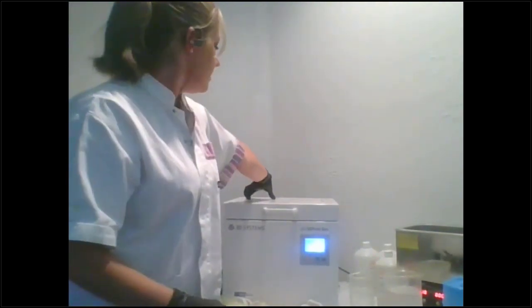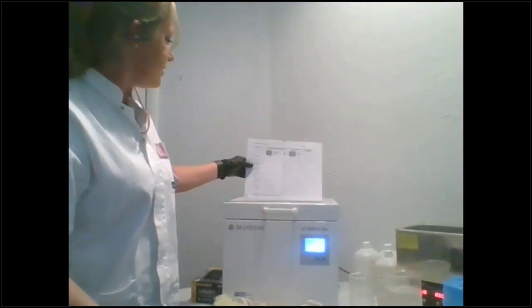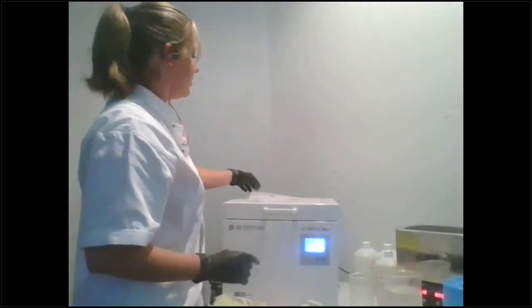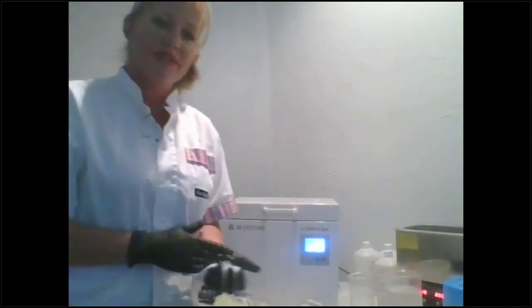We have a chart. And even if you're just using NextDent, but you're not using a NextDent 5100, still use this chart. It's real important. We validated everything with it. And so it'll tell you how to stir, mix, and how long to cure. It's right online. I just printed mine out and taped it to my cure ovens. This way it's easy access.